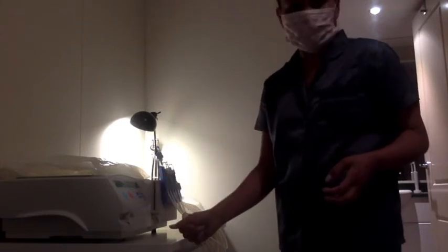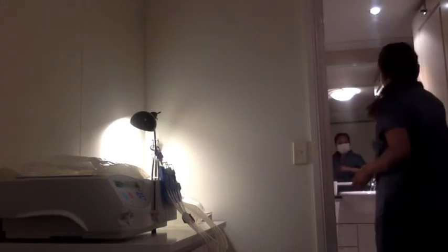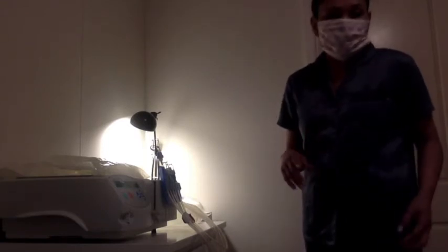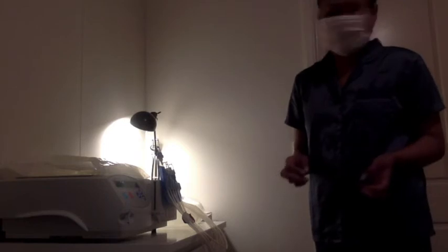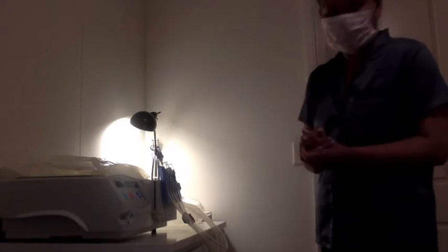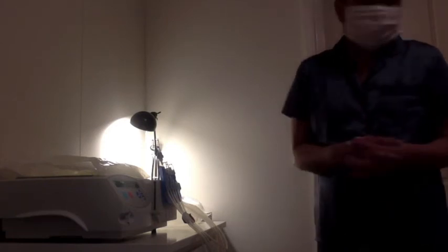It says load the set — I'm going to press the green button now. Self-testing. When I do this I make sure all the windows are closed, just in case it's windy outside or any breeze is coming through the room. It's just safer not to let any particles fly around — if there's dust in the house and all that. I normally just close the bathroom for my own safety. When you get all your information from the hospital, just try and follow everything, because this is for your own safety.